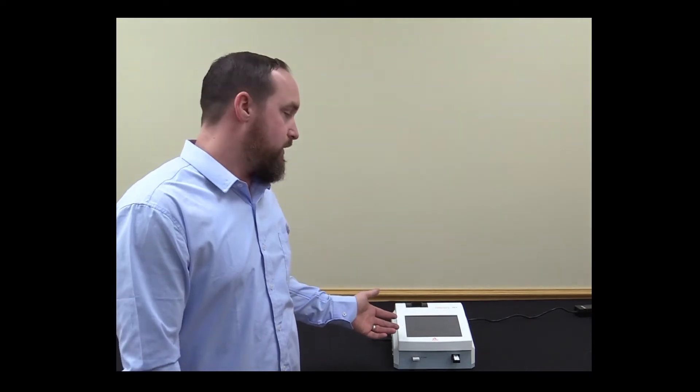Thankfully there is. Say hello to the in-house progesterone testing machine, Fine Care Vet system. The Fine Care Vet allows you to run progesterone tests in-home and save you a ton of money in the process with a system in your control.